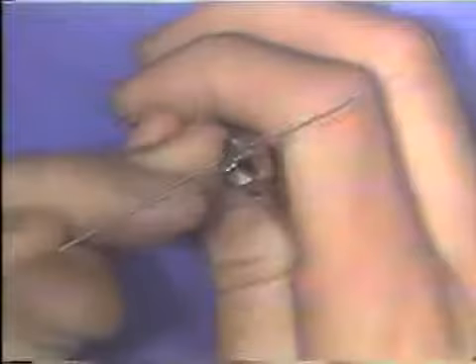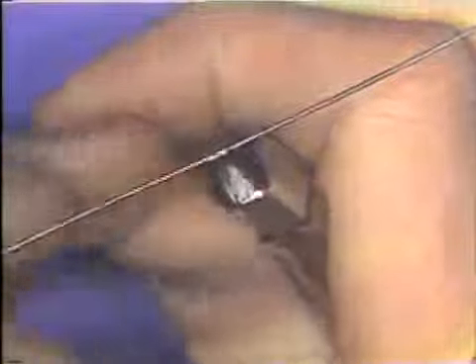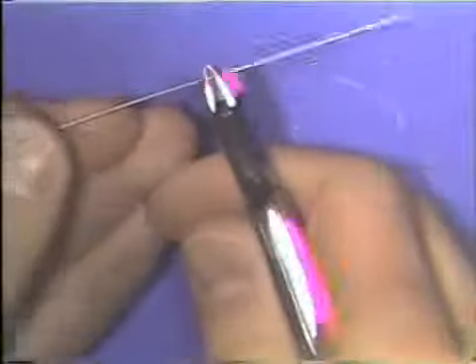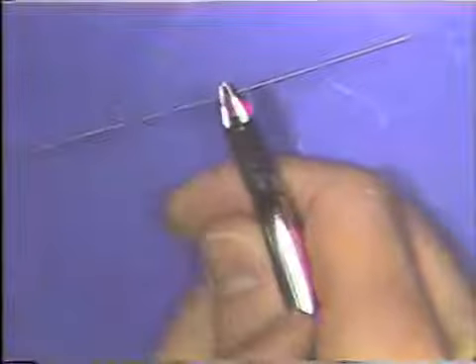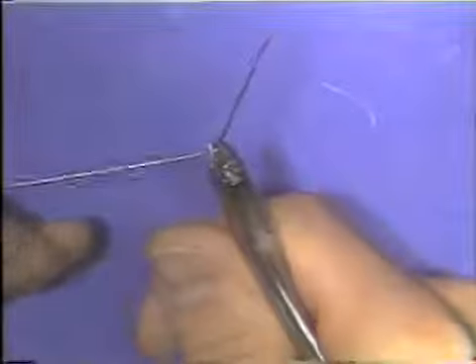The 201 plier has 3 beaks that close together on themselves. Now, the 201 plier will bend a wire simply by squeezing it. To bend a wire with a 201 plier, the wire is placed between the 3 beaks of the plier at 90 degrees to the long axis of the plier beaks, and it is squeezed. By simply squeezing the wire, then, the bend is made.